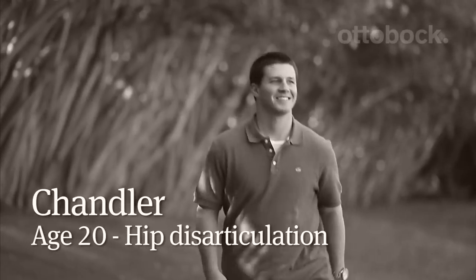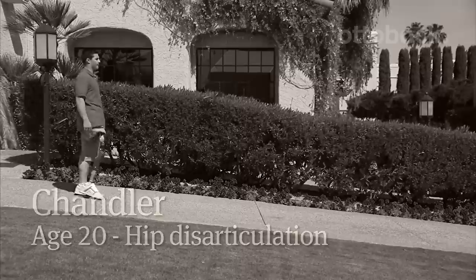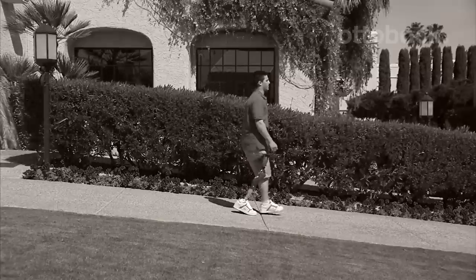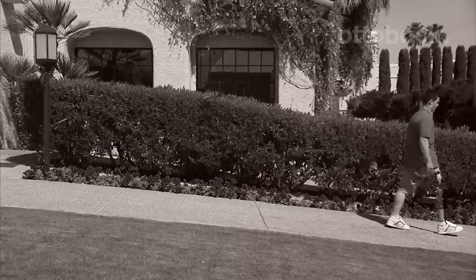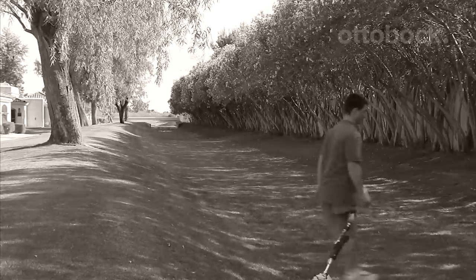The Helix allows you to walk at any speed over any terrain, not just mobility on flat ground, on flat cement. I can confidently hike with this setup and I can go over rocks and any terrain I'd like. I'm definitely not able to do that on any other system.